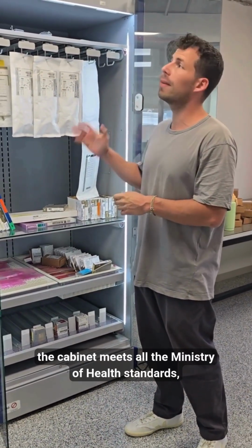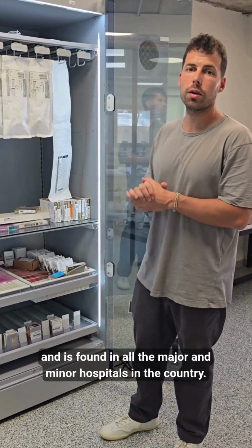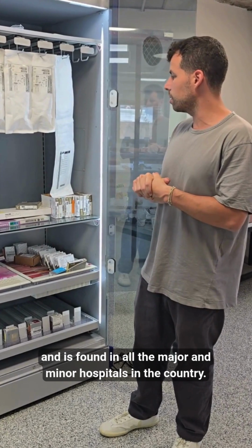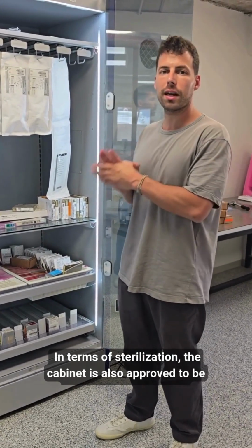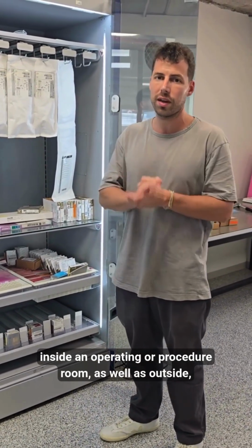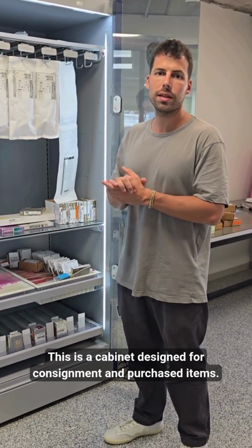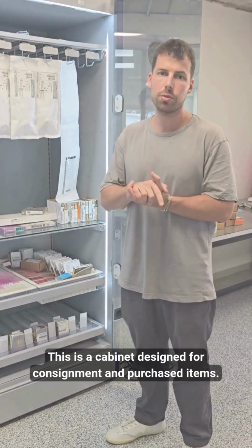In addition, the cabinet meets all the Ministry of Health standards and is found in all the major and minor hospitals in the country. In terms of sterilization, the cabinet is also approved to be placed inside the room, inside an operating or procedure room, as well as outside, and almost all departments are intended to work with such a cabinet. This is a cabinet designed for consignment and purchased items.